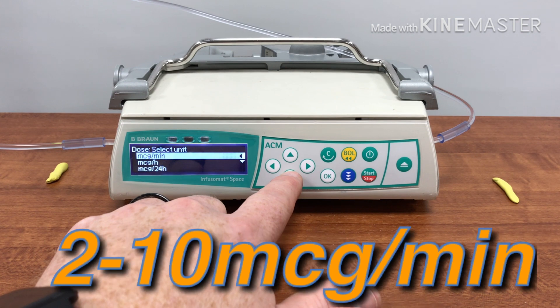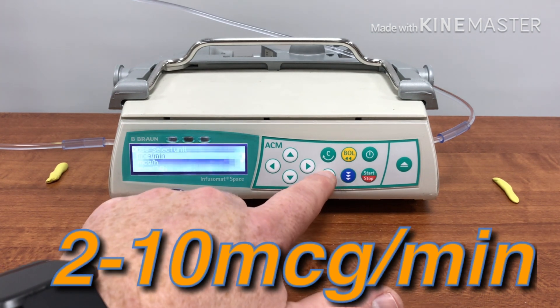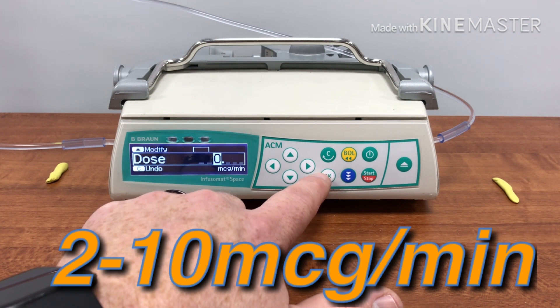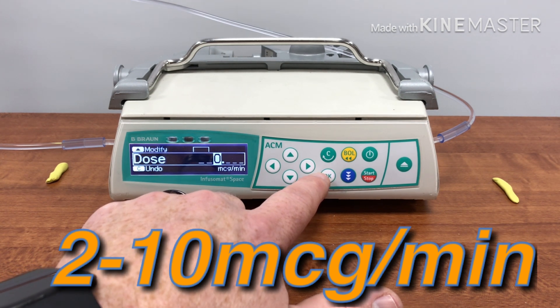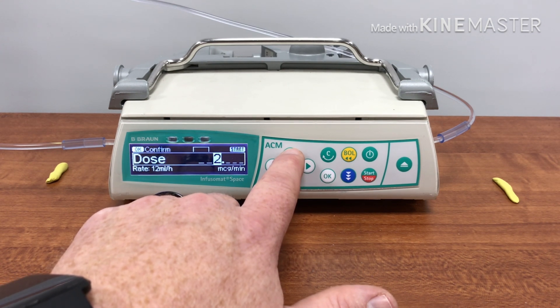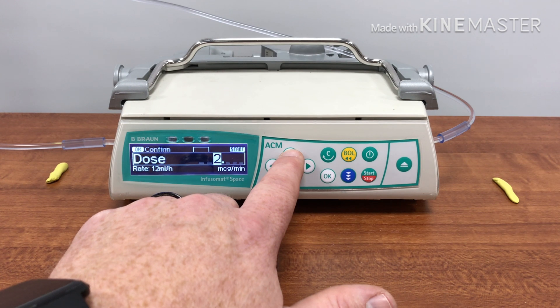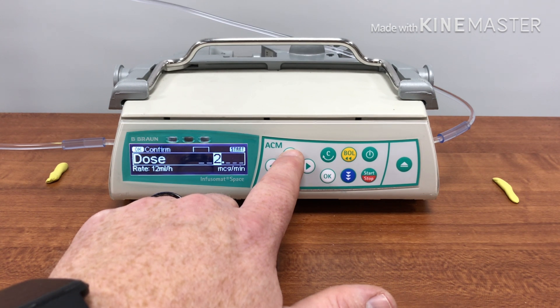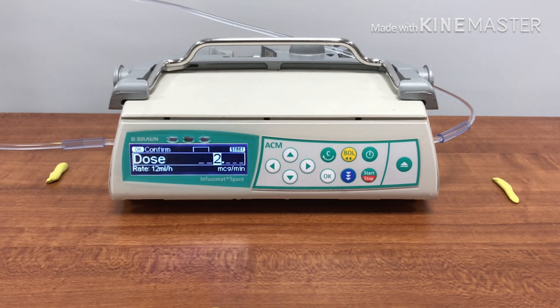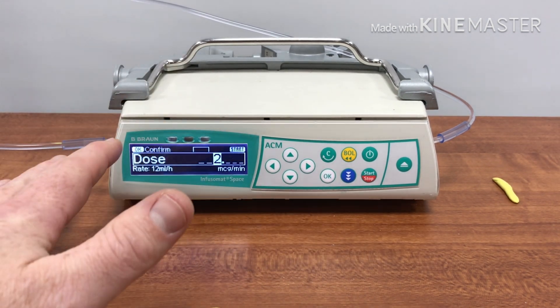Now what's the dosing? We know it's micrograms per minute. The dose range is two to ten micrograms per minute. You can start wherever you feel comfortable and wherever you have determined the patient's stability or blood pressure is safe for them. For training purposes, we're just going to start with two.